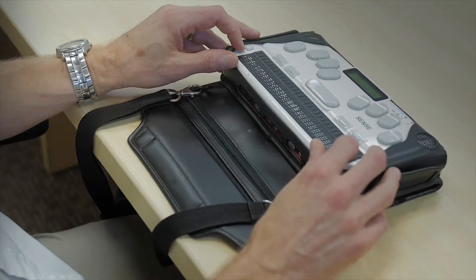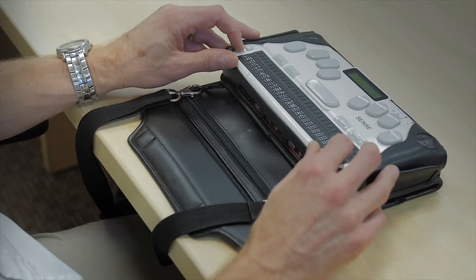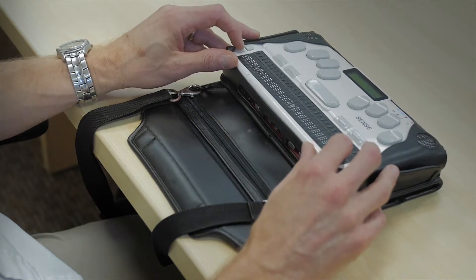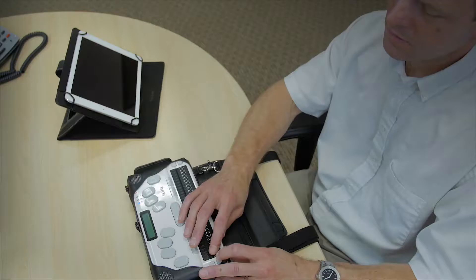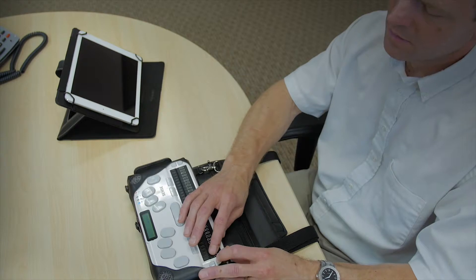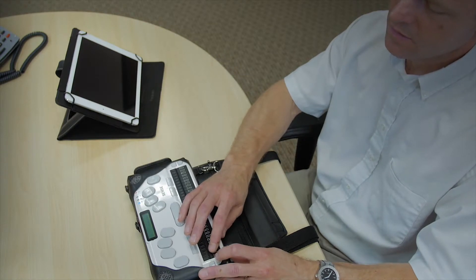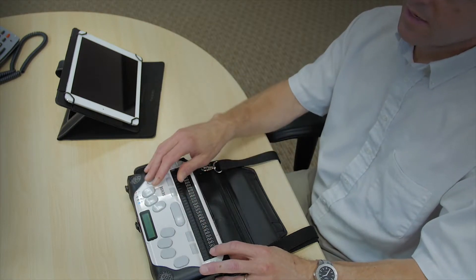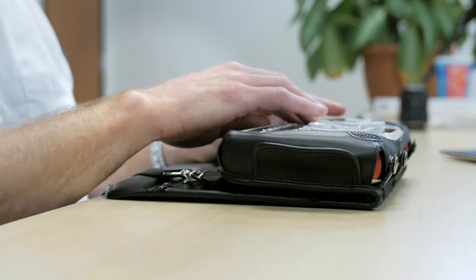Word processor W, email E, media M, organizer O, web tools, social networking, extras, games, programs, utilities U. And I'll go ahead and hit enter on utilities.